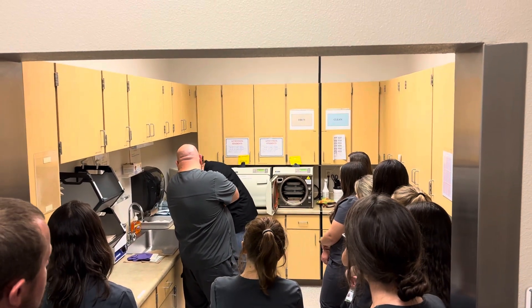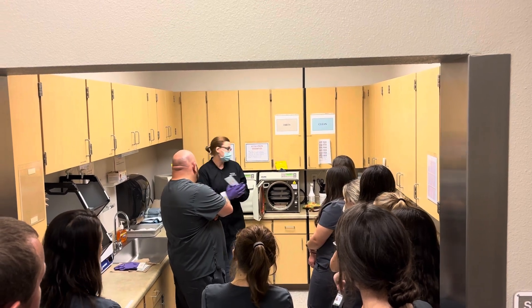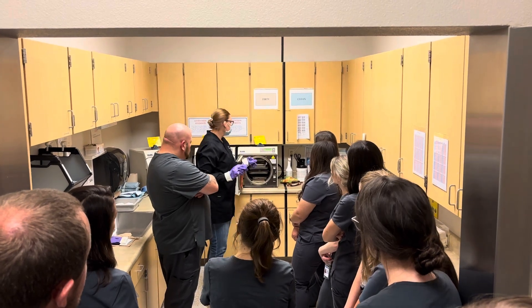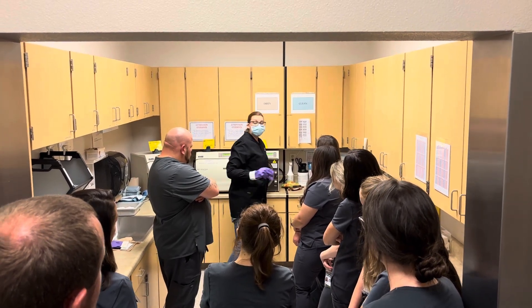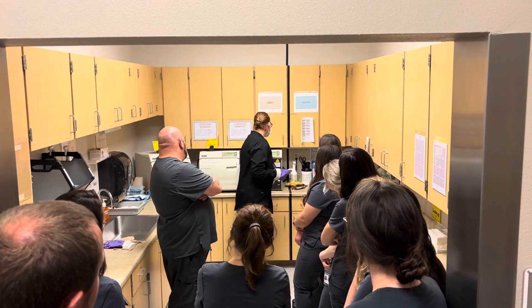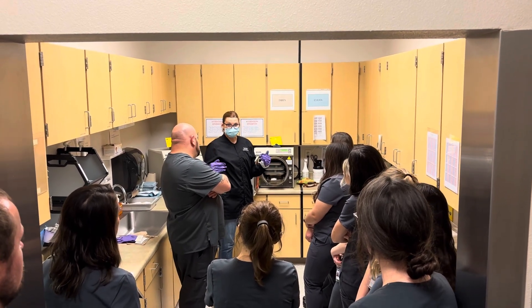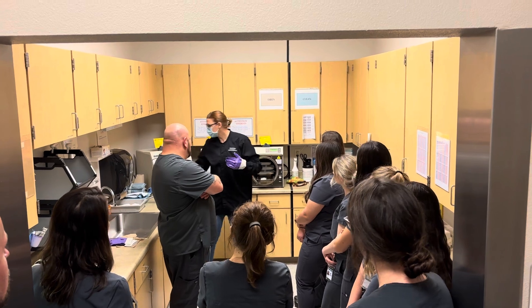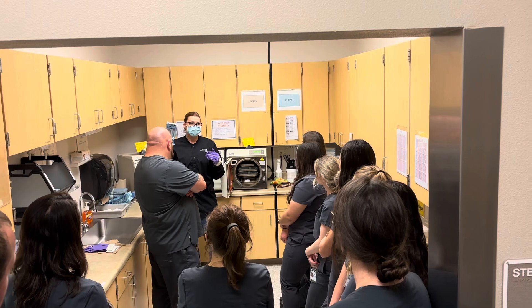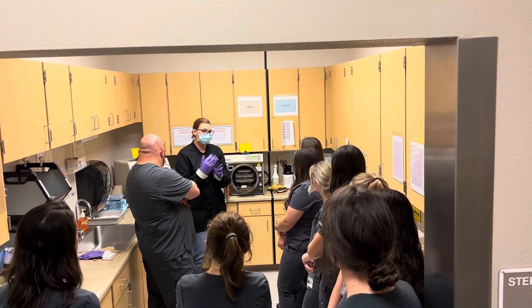The date and the unit number that it's going in written on, and it's just going to go in the top. If you have a couple of loose instruments, we can put them in, but we're not going to overload. We do not want to overload. We have different packages of instruments over here. I'm not going to shove all these in here because we've got three autoclaves — there's tons of room. We just don't want to risk it.